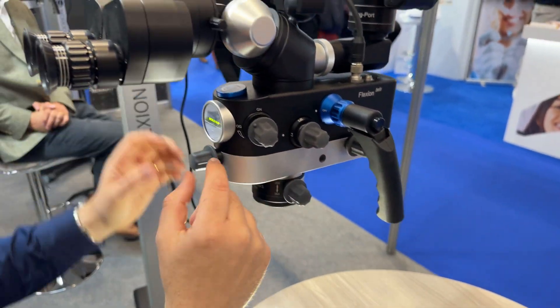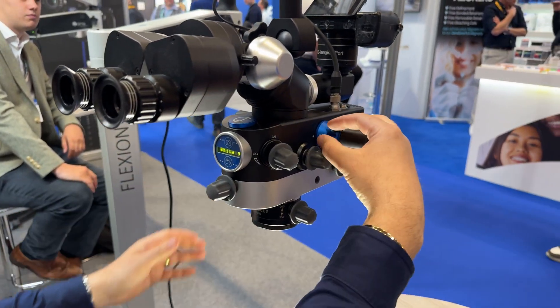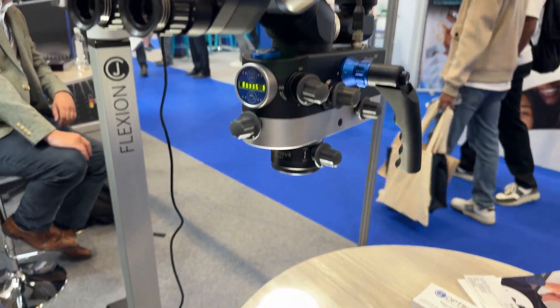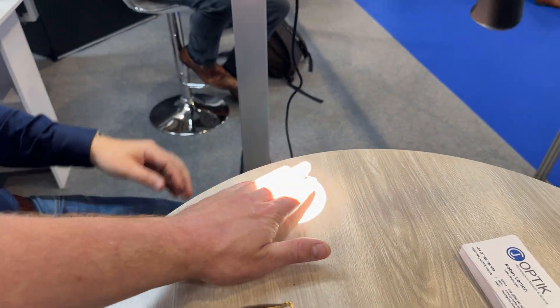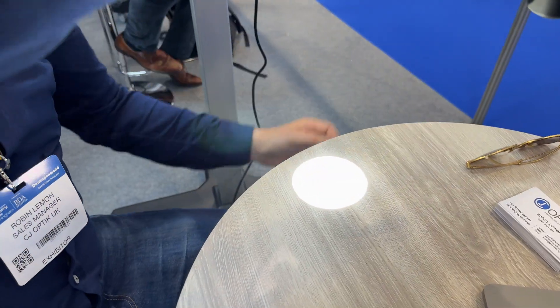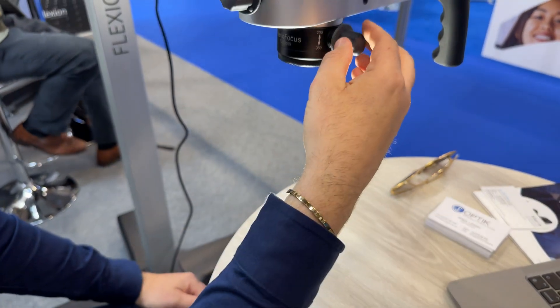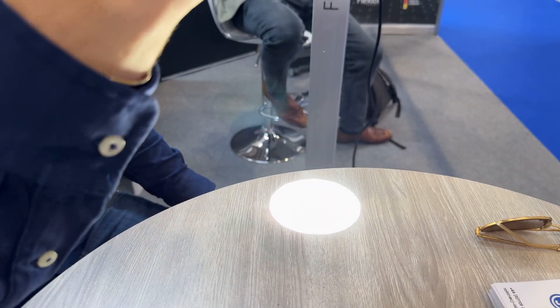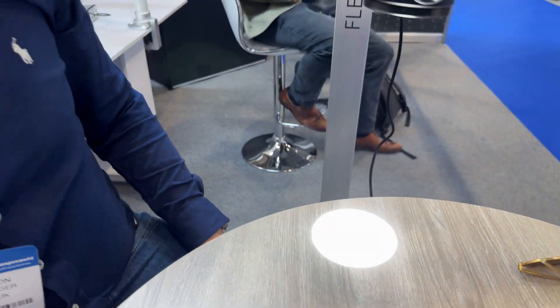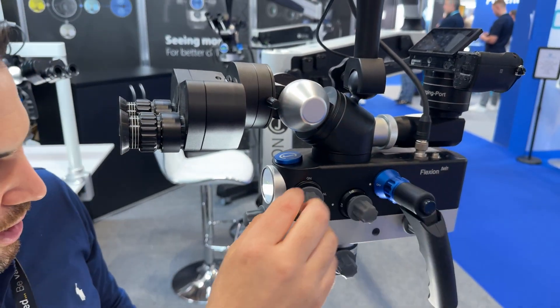At the moment we're at 51 brightness so let's get that right up to the brightest - and did you see that? The camera doesn't do it justice. But for people doing surgery, this amount of brightness is absolutely - if you're removing instruments right down canals or looking right down canals, it gives you that extra really really bright boost that you didn't think you needed until you have it.